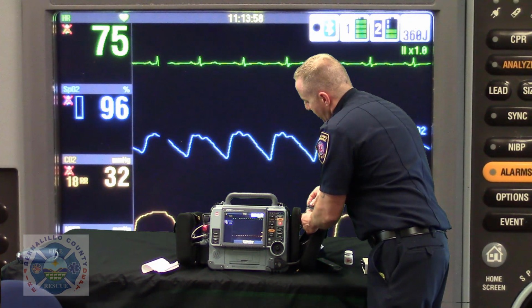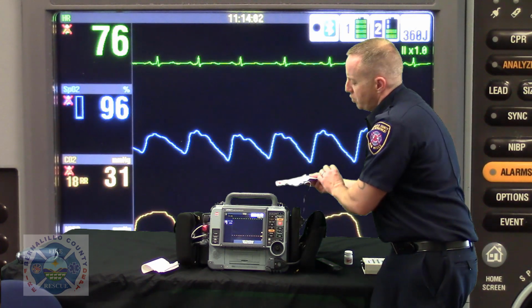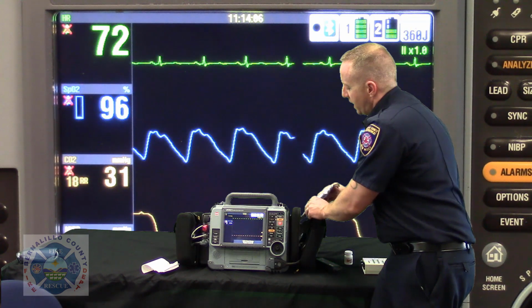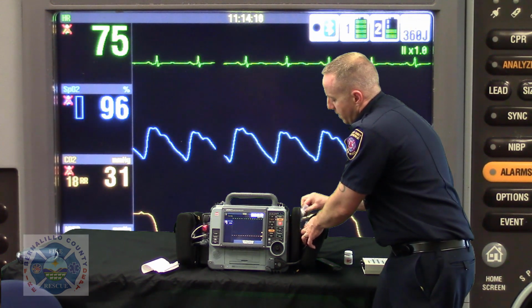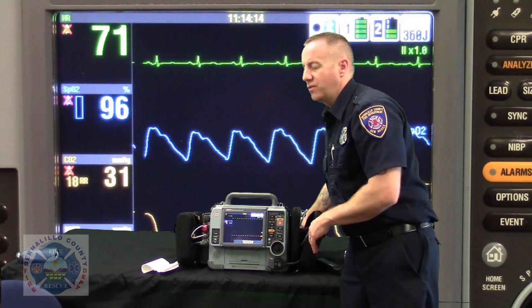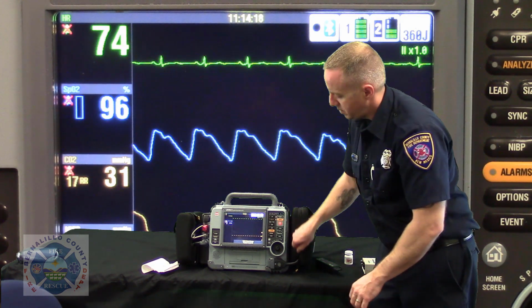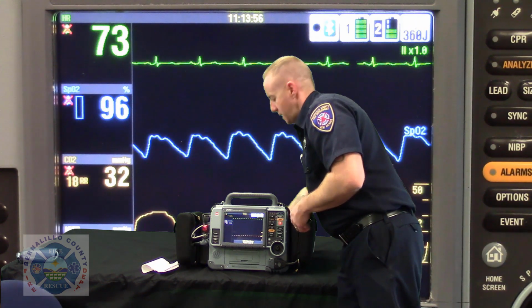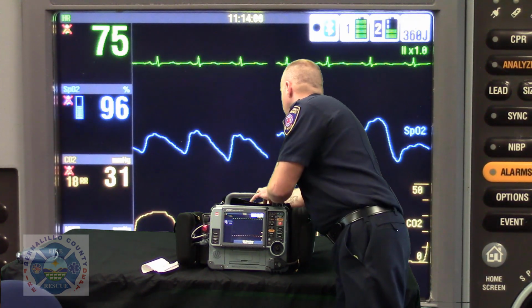If you can pre-stage your pads in a sealed container, great, but do not open up a container and pre-connect your pads if it's not offered in an option like this. In our climate, any open electrode is only good per manufacturer for 24 hours. So make sure that you're not leaving electrodes unwrapped out of their package for more than 24 hours. Now, again, those ones are designed to be set up that way. So that's great.